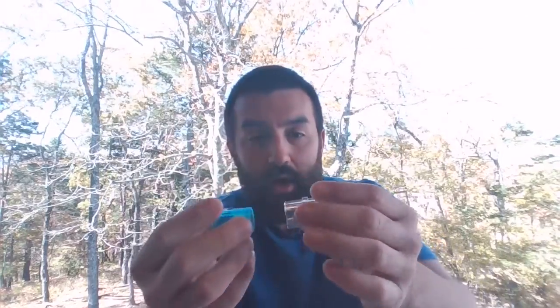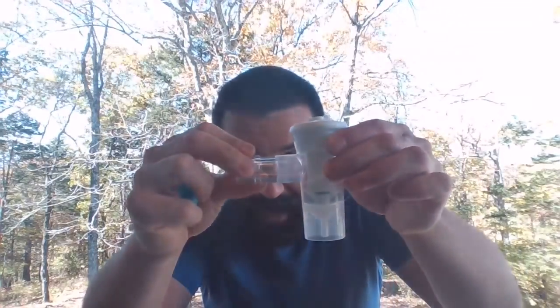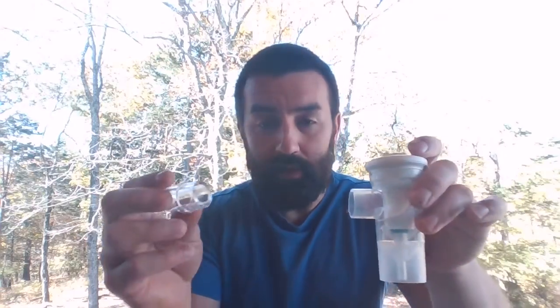Okay, so these come in a blue color, they come in a clear color. Ultimately, what this is, it's a 22 millimeter outer diameter, so corrugated tubing hooks to this. All right, likewise, these fit inside of that nebulizer piece, which you might be able to see where I'm going with this. So it's got a 22 millimeter outer on both sides. It's also got a 15 millimeter inner, so we don't need that part necessarily right now, but sometimes you're hooking to a 15 millimeter adapter, like standard airways and things like that, and you have that adapter on the inside right there, okay? And there are some things which will use that inner diameter piece. So whether it's blue or white, or blue or clear, doesn't really matter.